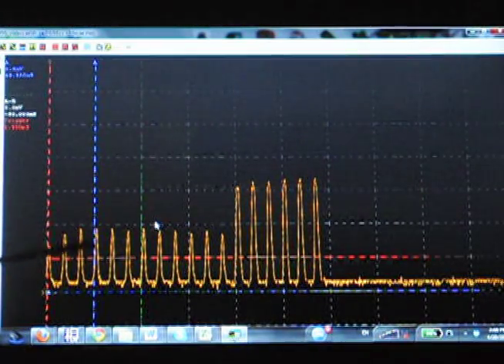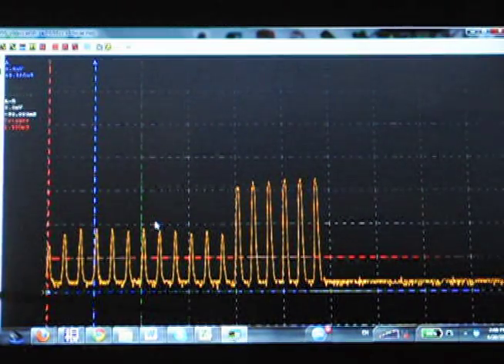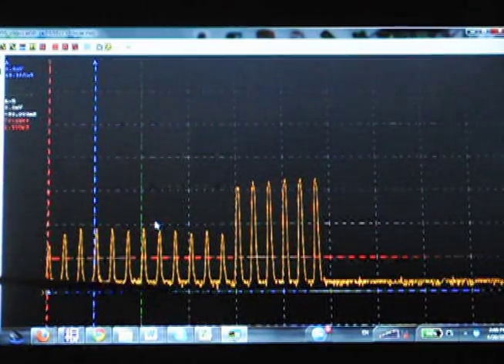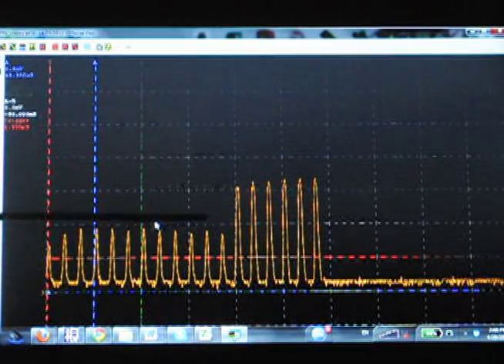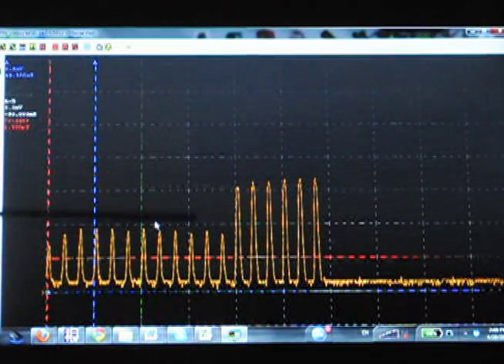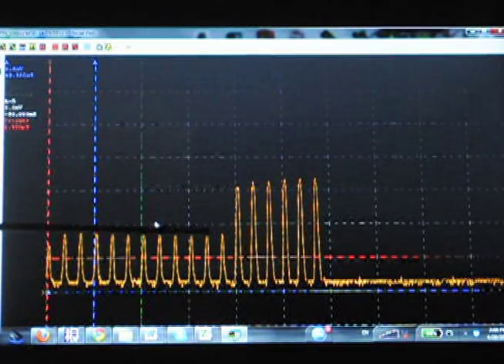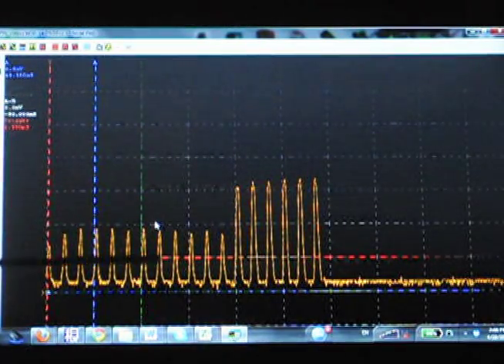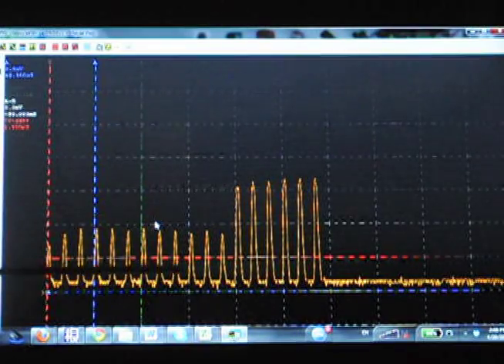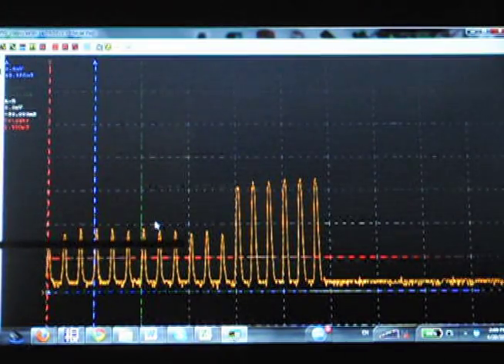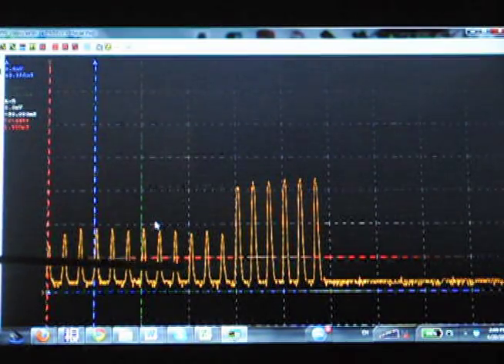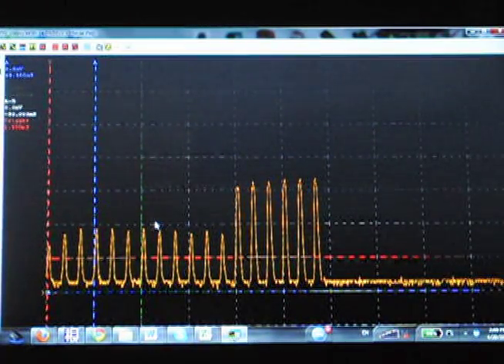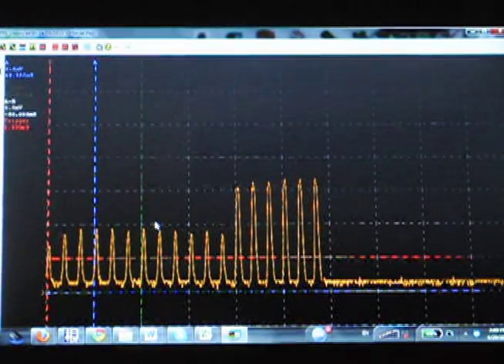This is a very good tool for diagnosing what's going on with an x-ray. In fact, this shows a slight problem, the problem with x-ray exposure during preheat, but that is characteristics of these GENDEX machines.